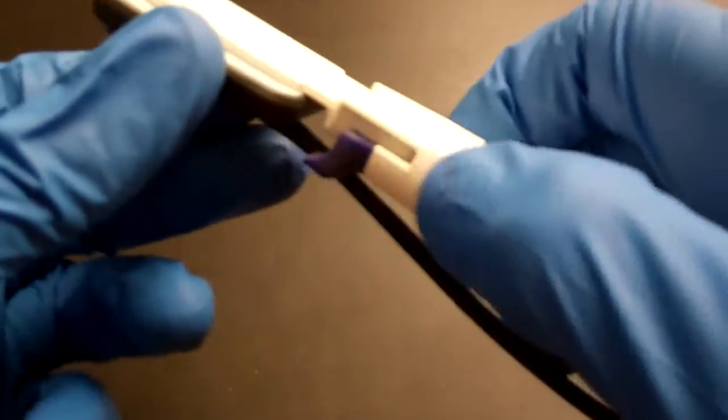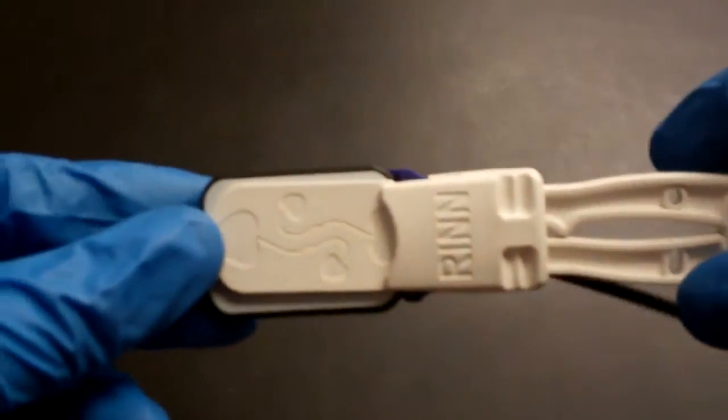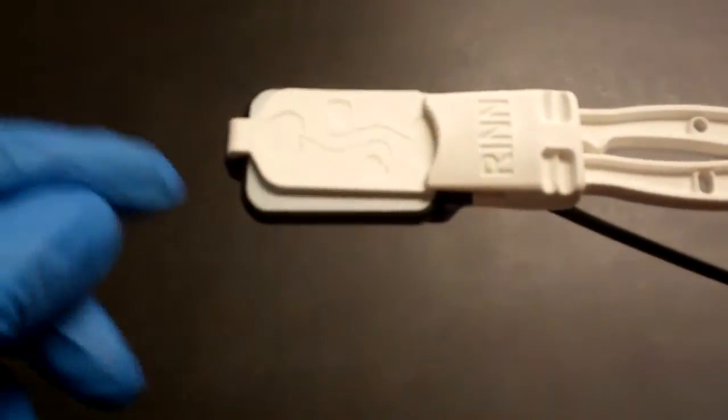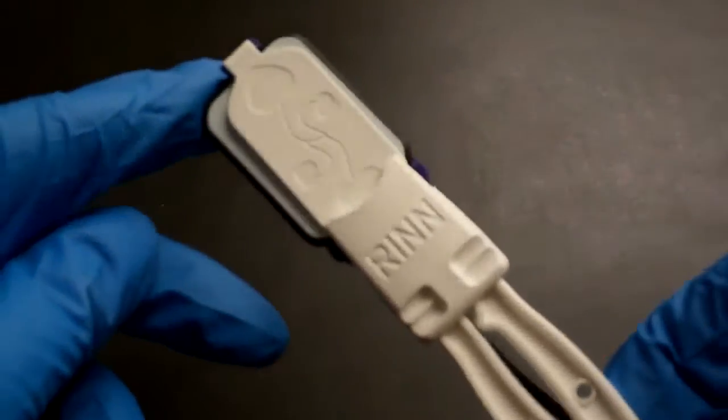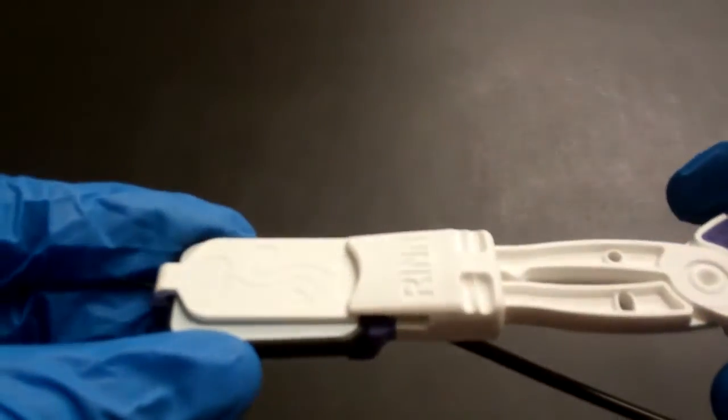And this is how the interior end would work. We just slide on through there. We have the active area we'd be imaging through the plastic. This little part here would be the incisal edge stop, and the patient would just kind of hold this in their mouth for those anterior periapical images.